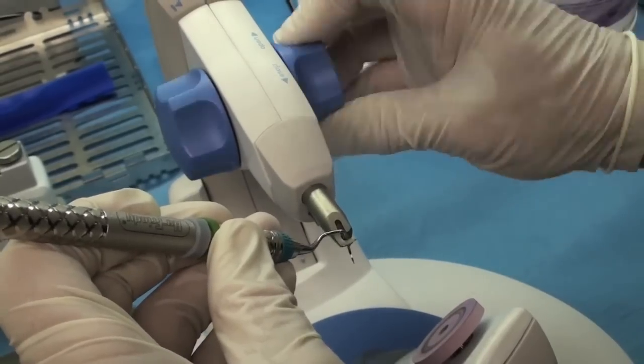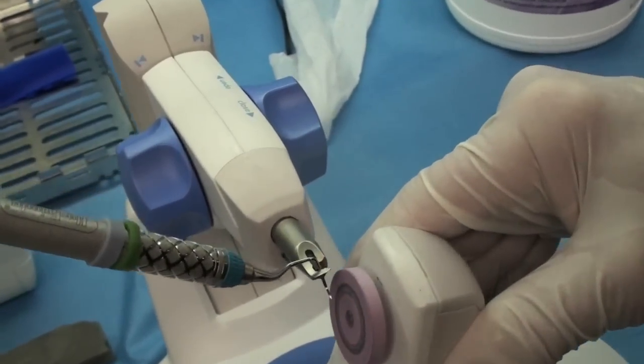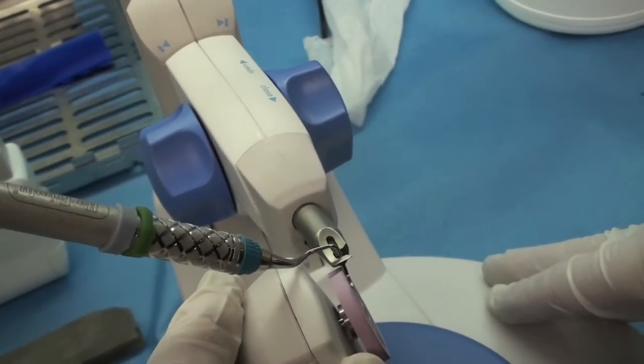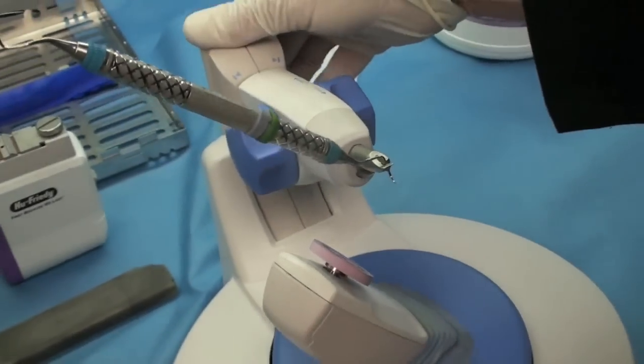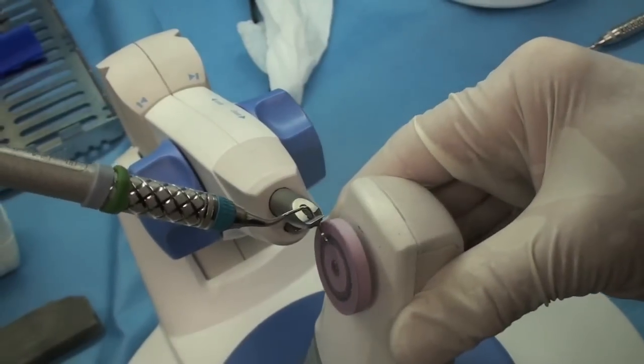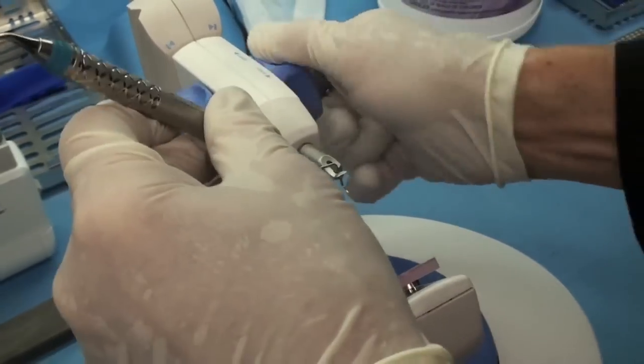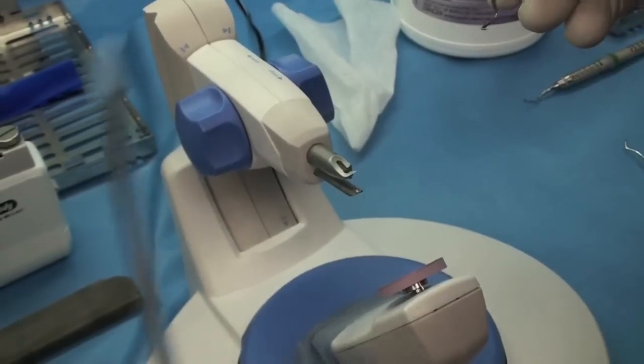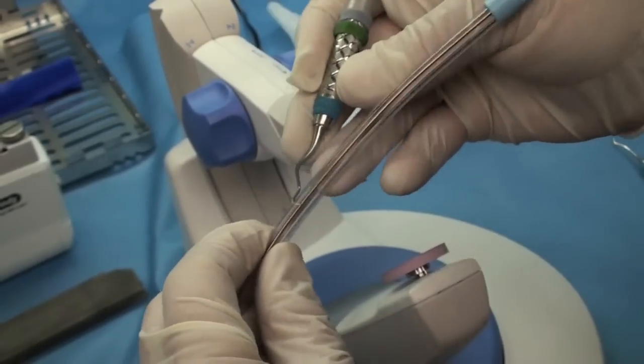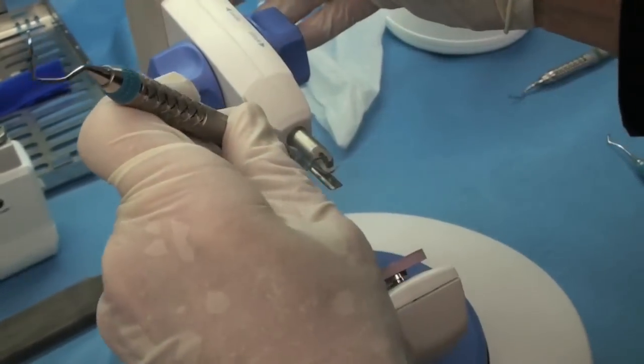All the way back. Tip in. Again, you started at three. Now you put it down to a two. You could even put it down to a one. It's flat there. I just recommend it. I personally think it fits better on the two. So that's why I like to use the two. I just feel like it gets a smoother, larger part of the blade. I finished off on the one. I didn't like that. So let me redo this.